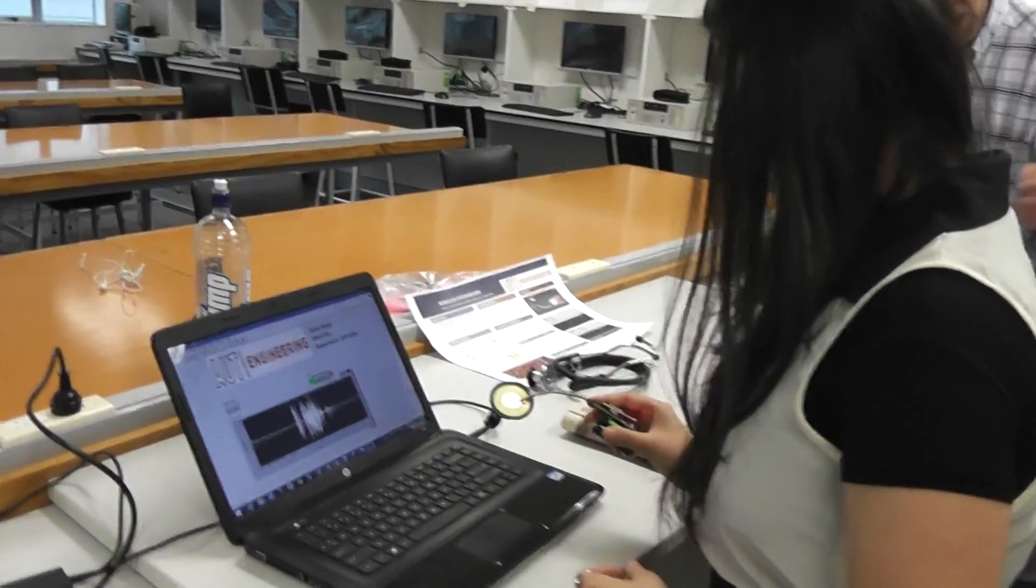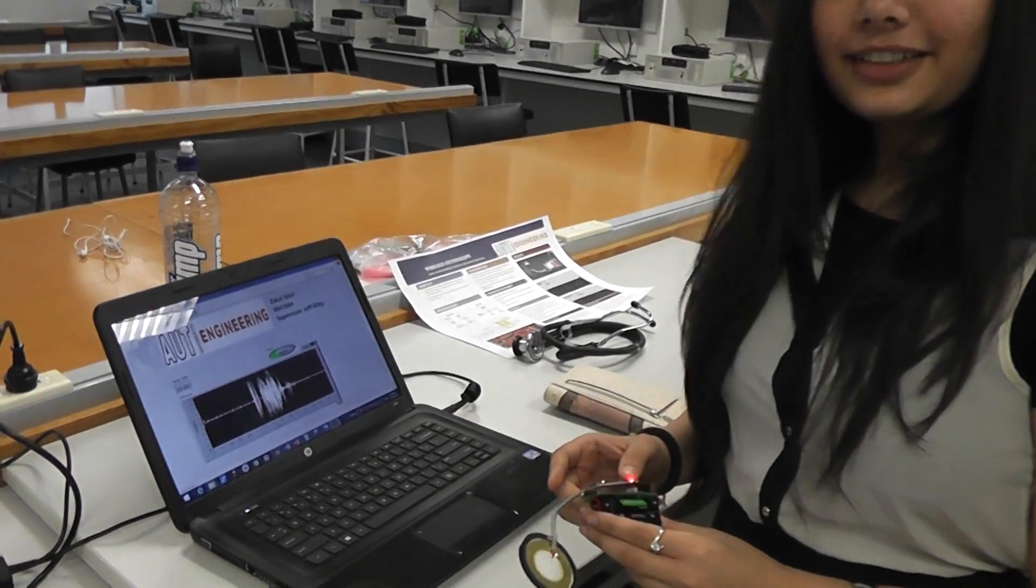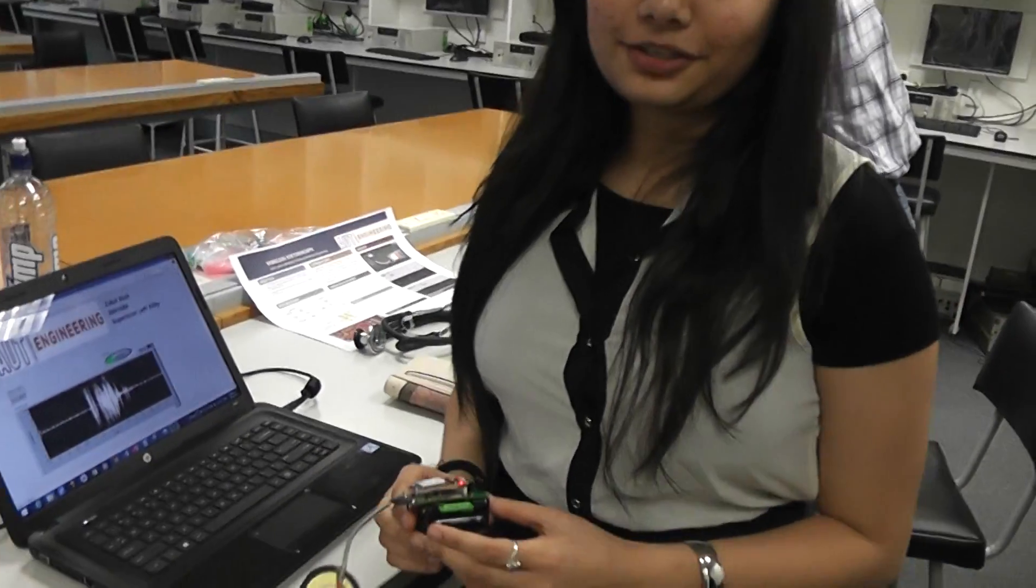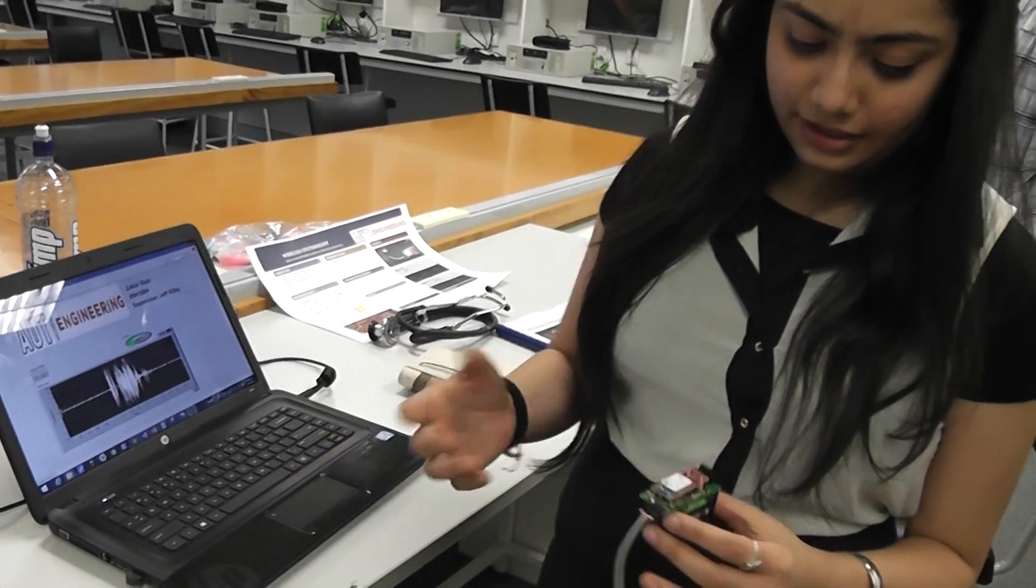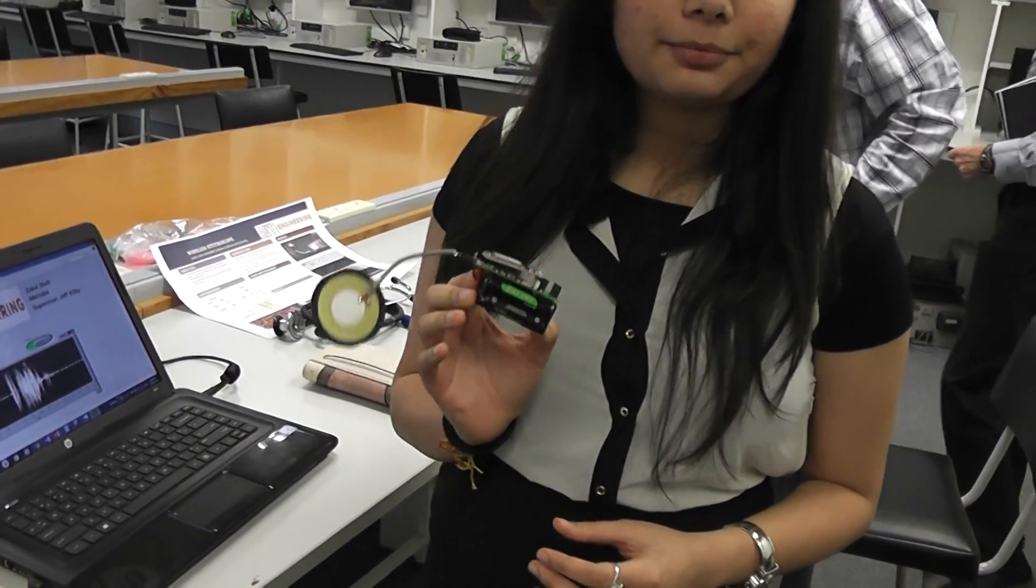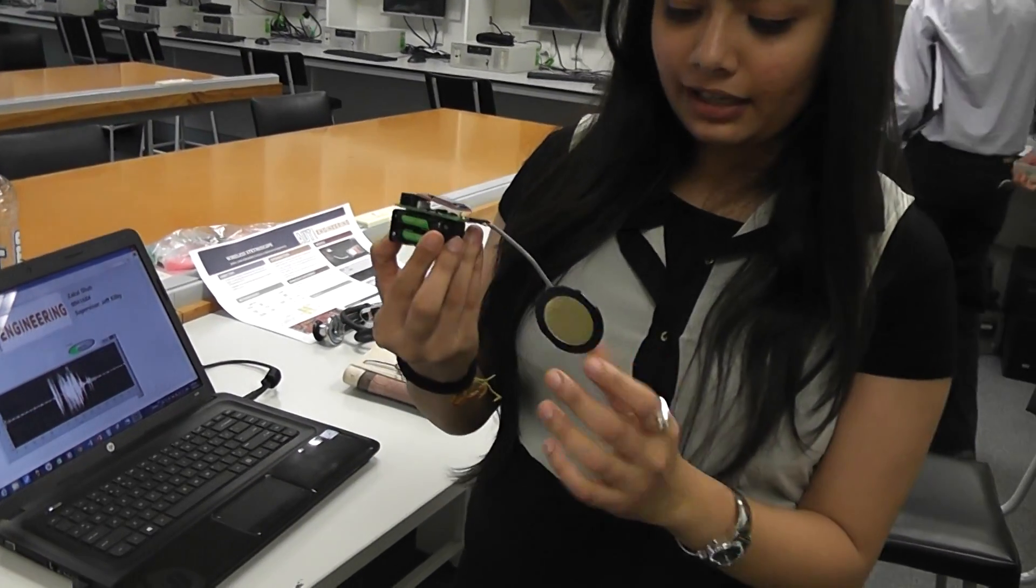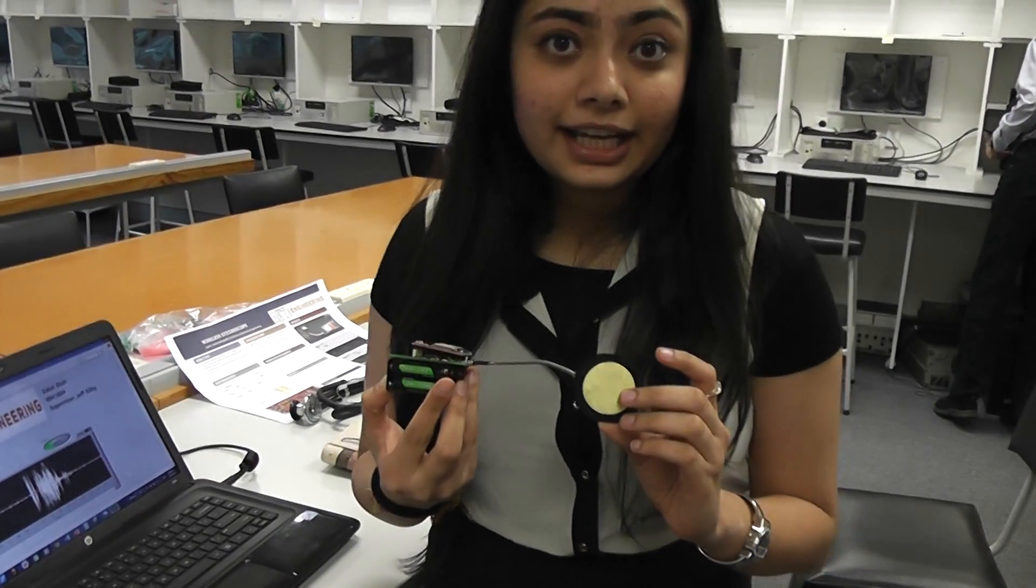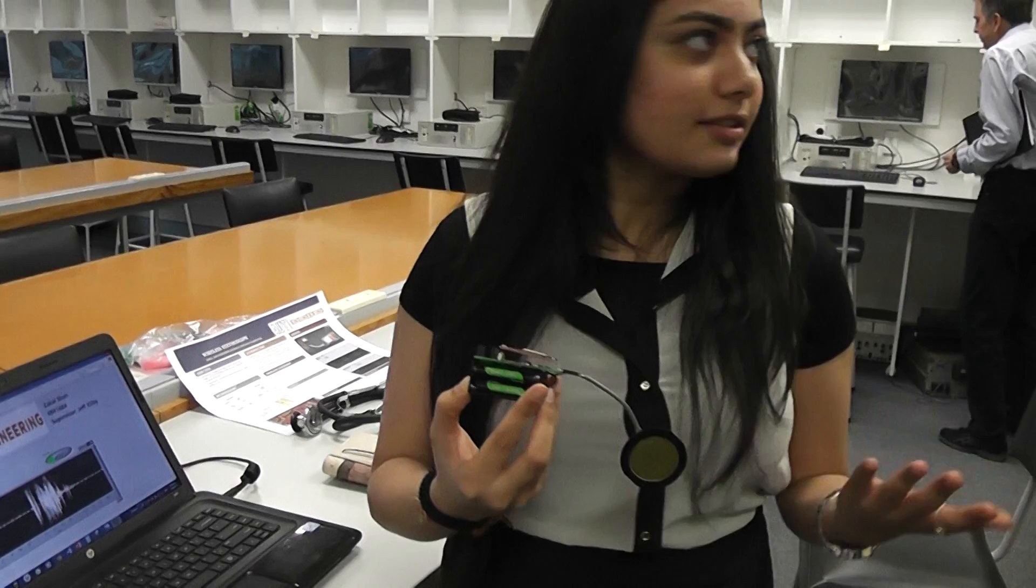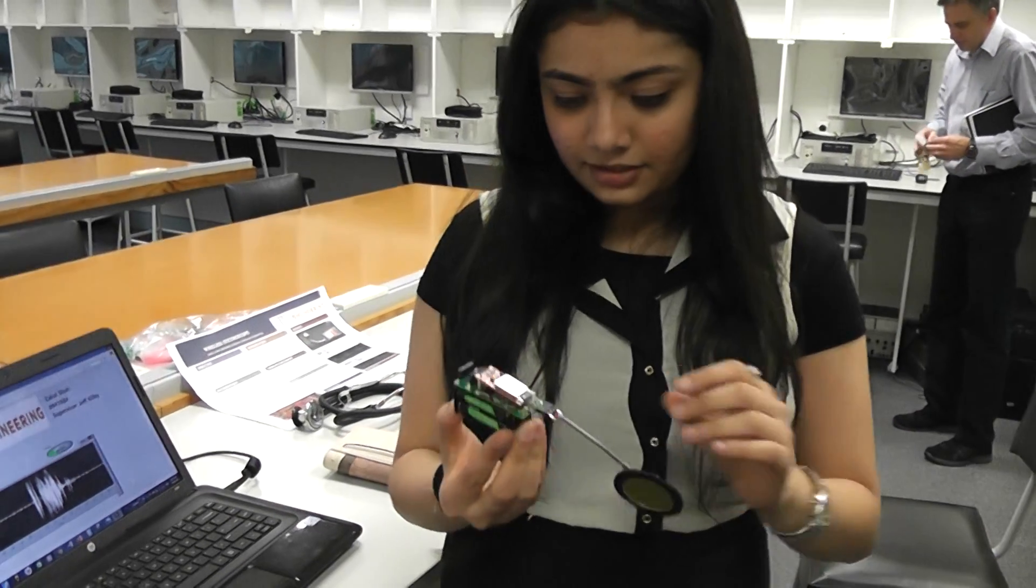Tell us a little bit about this thing. So this is an electronic stethoscope. Basically it's a wireless stethoscope with no connections, and this is the final product. This is the mic - it's a contact microphone. You just place it on your skin and it senses your sounds and pulses.